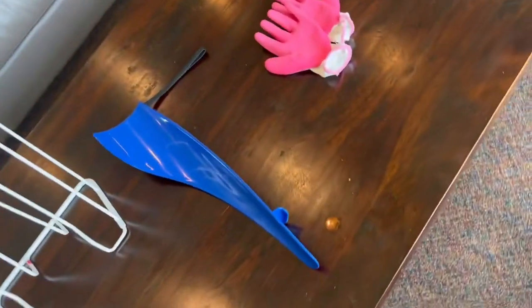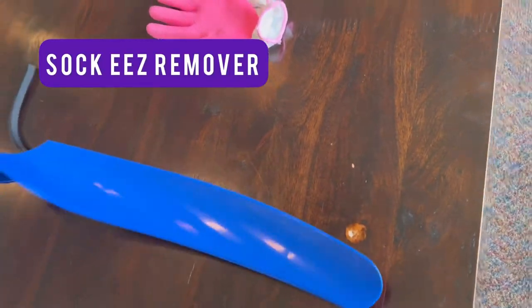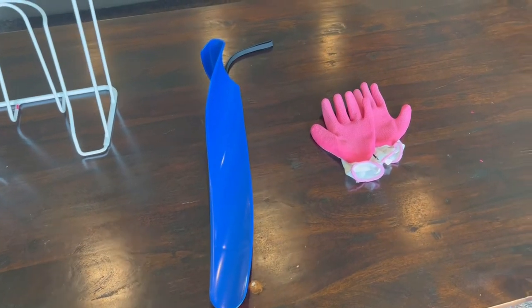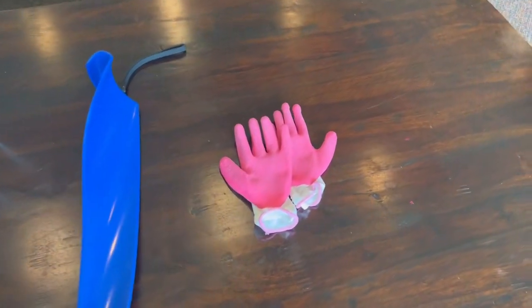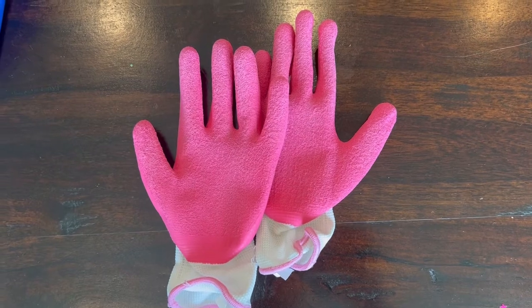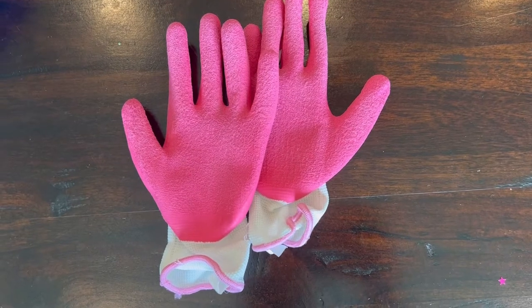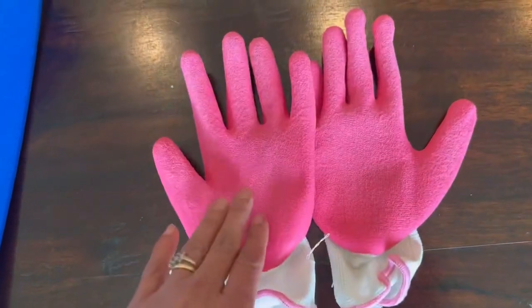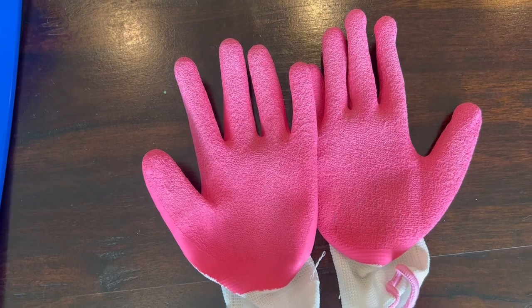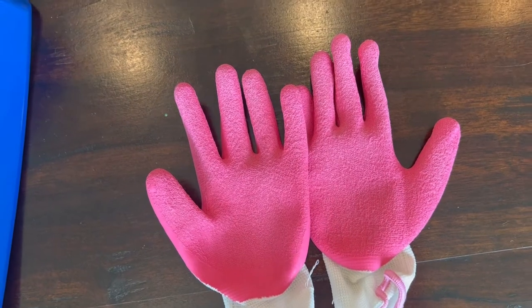Then I have what's called the Sock Ease remover — some people call it a long shoehorn. I'll be showing you how to use that to take the sock off. And this is just a pair of garden gloves, made by a company called Maddie, but you can go to any hardware store and get garden gloves. They have a grip and texture in the middle that gives you better grip to hold your stocking, so you're not picking at the fabric. It also compensates for weaker hand strength.